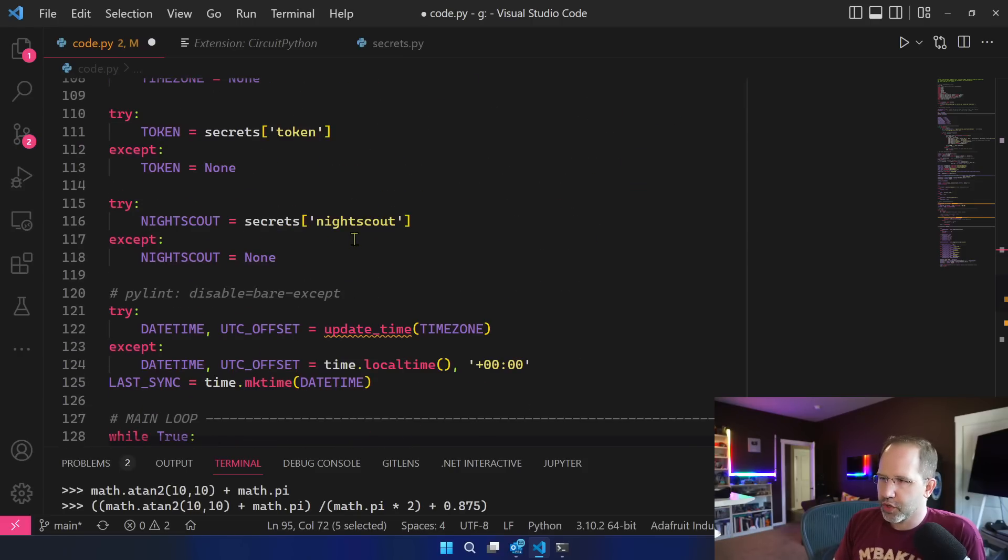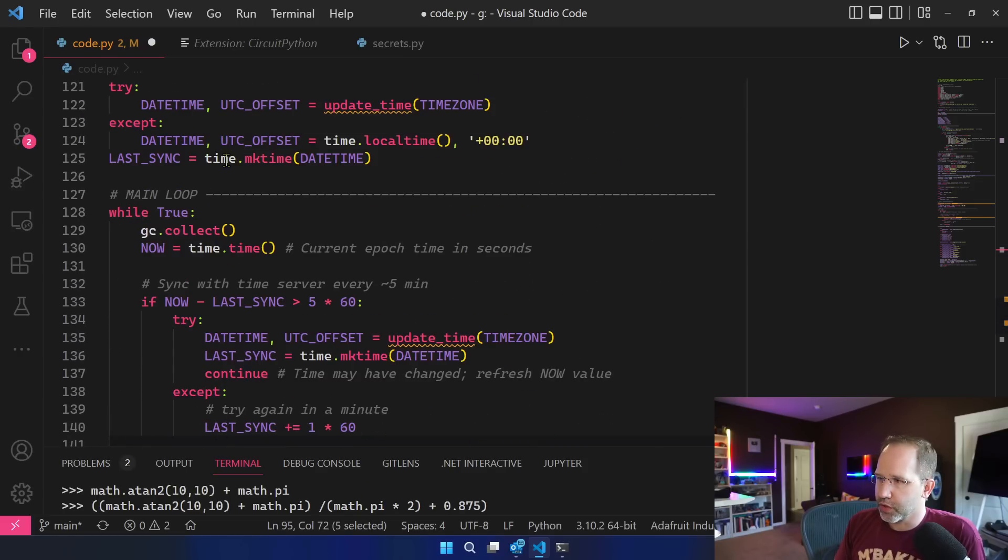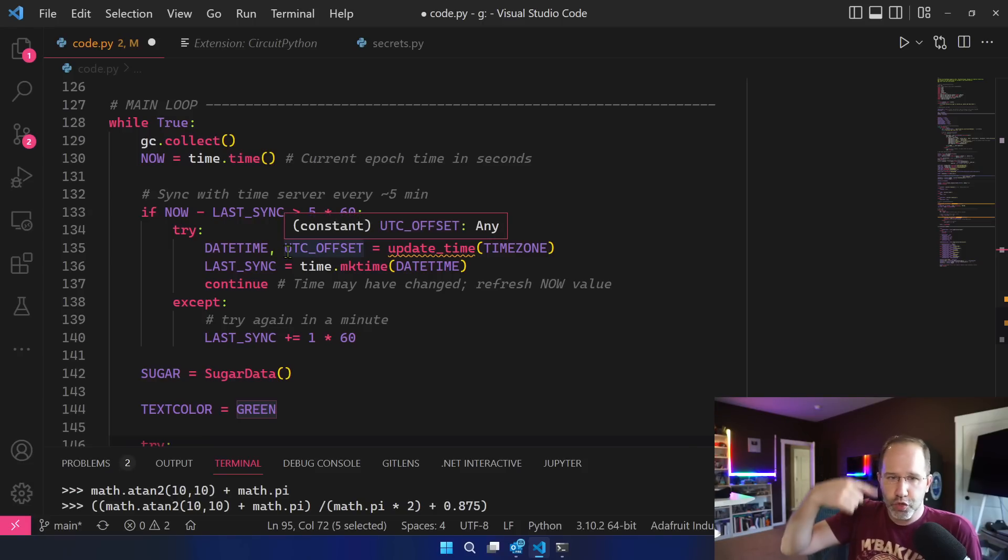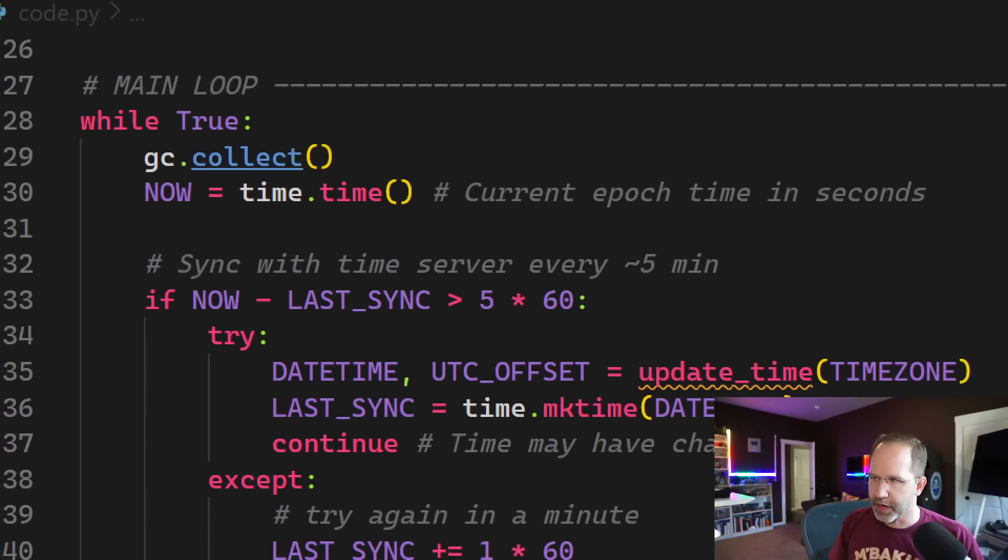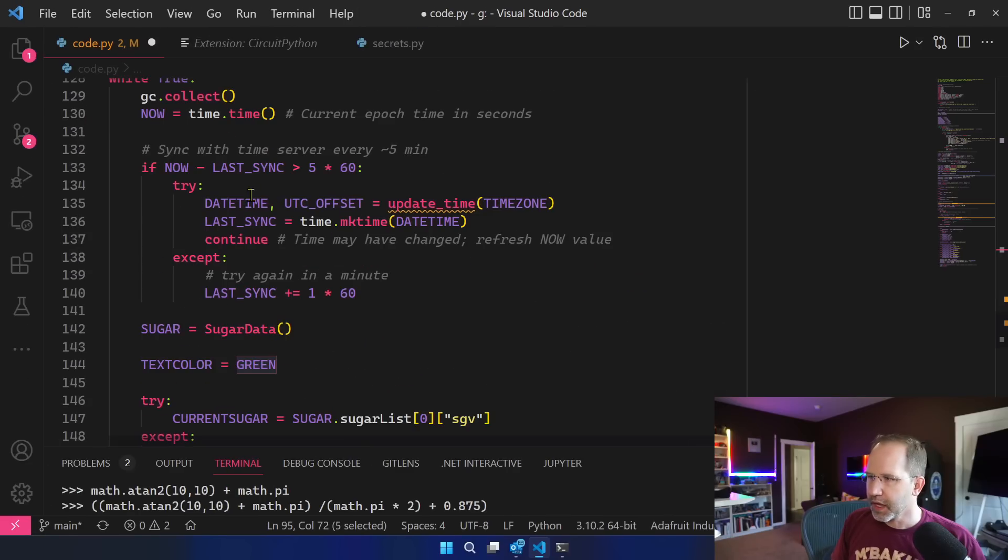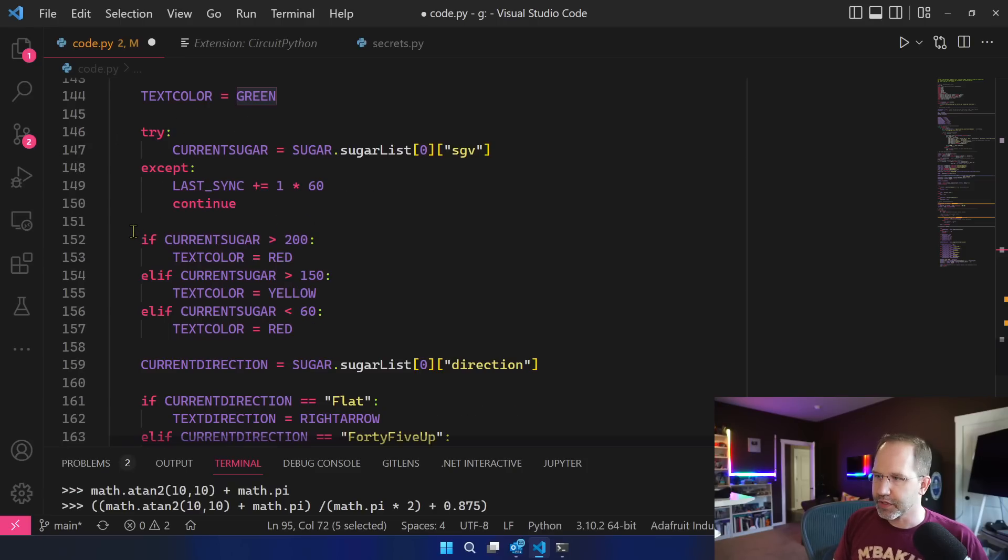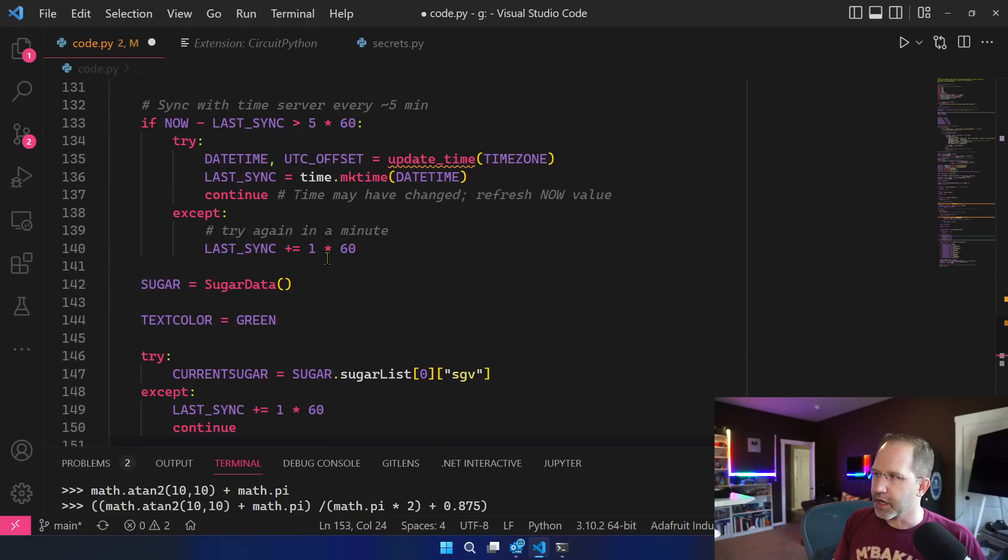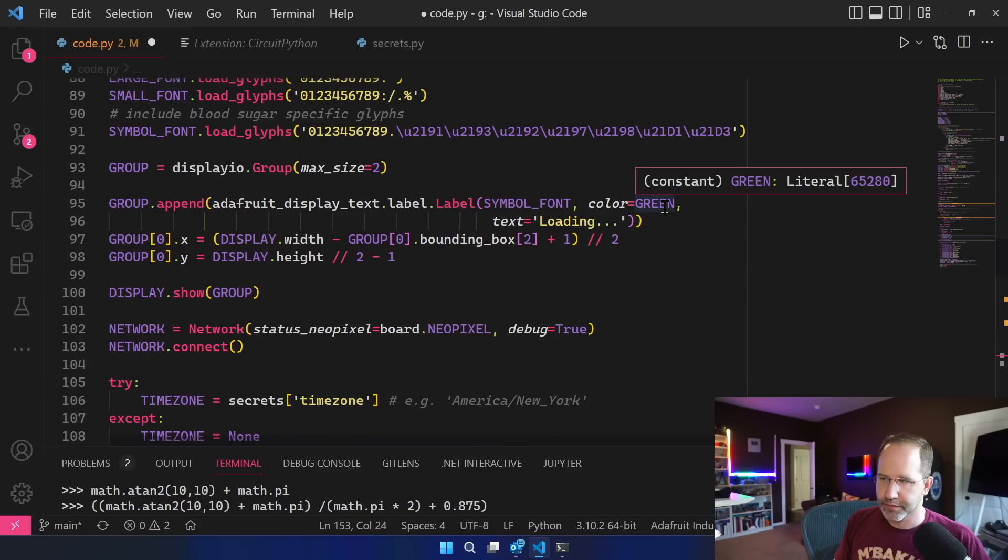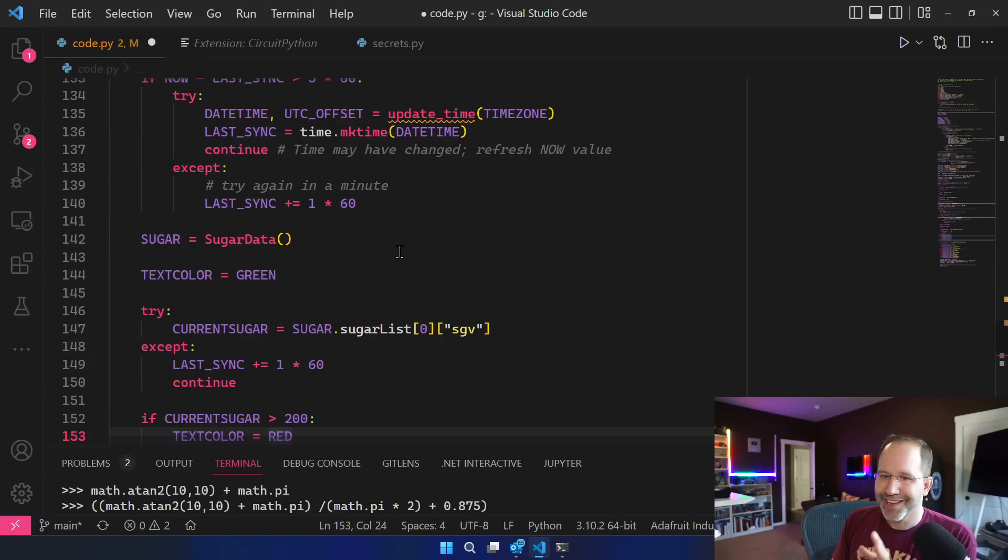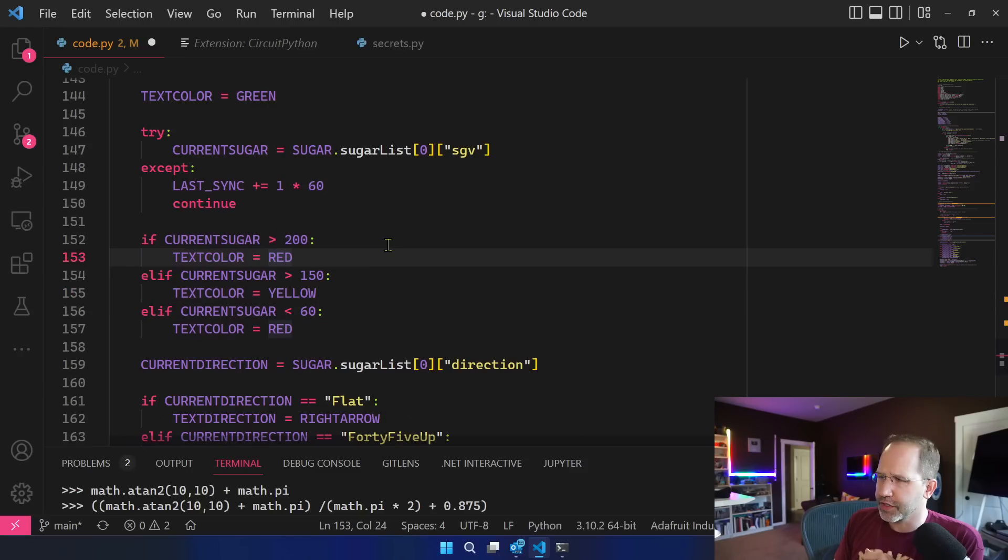We'll grab our time zone and our token to talk to our website. We'll get our local time and everything and then we've got this main loop. We're going to do this while true, and while true in any language Python or C# means forever. And then right now I'm just checking the time and resetting every five minutes. I start out with the text color green and this was my attempt to say if my blood sugar is over 200 turn it red. Problem is I already set up my color up here and there doesn't appear to be a way to change that color ahead of time. I'm sure I'll figure that out or one of my friends in the comments will bring that up.